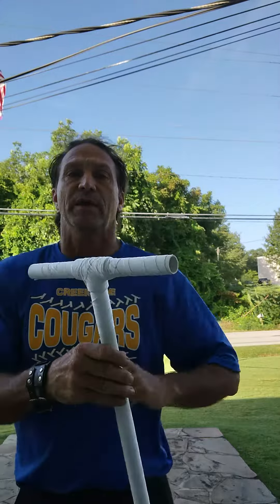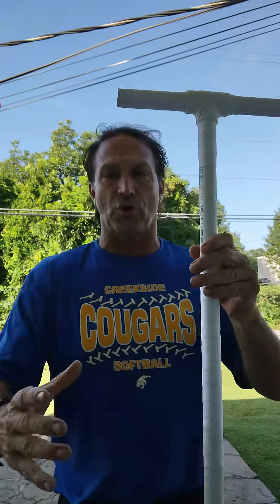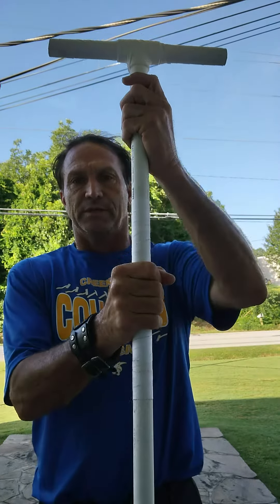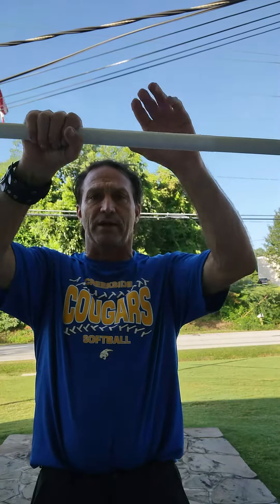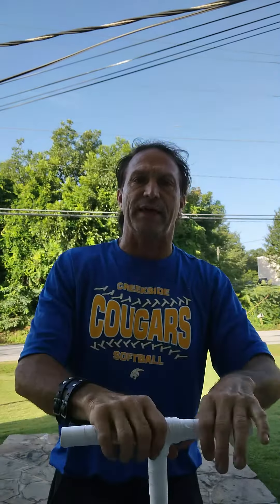Pull up one shoulder, pull up the other. Even early on, if this were your bad shoulder, hold it here and use your good arm just to help begin to lift. Or if you're going overhead — if you're at that point — let your bad arm hold it and your good arm help lift the stick. So there are many things you can try to do with this stick.